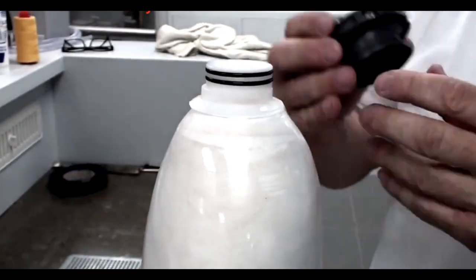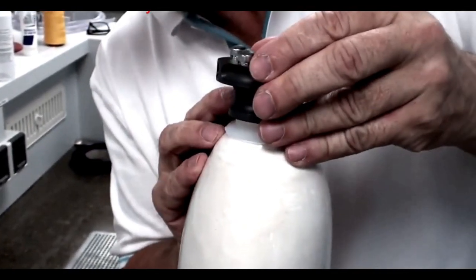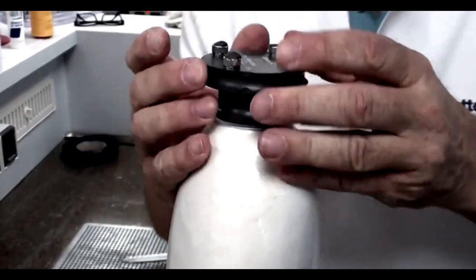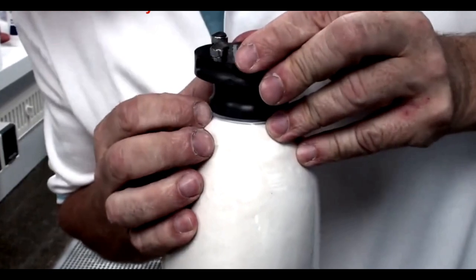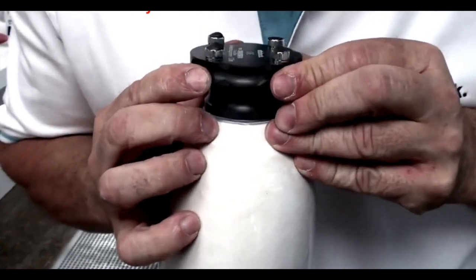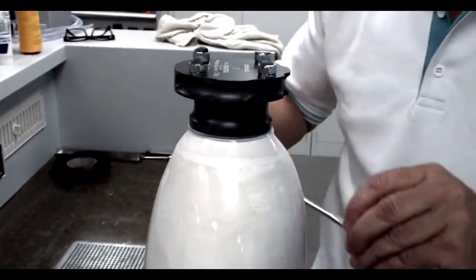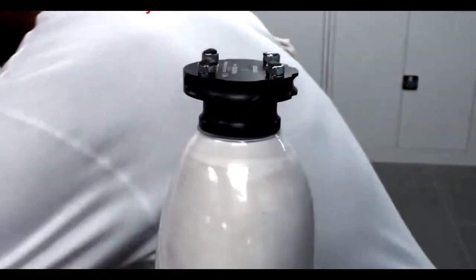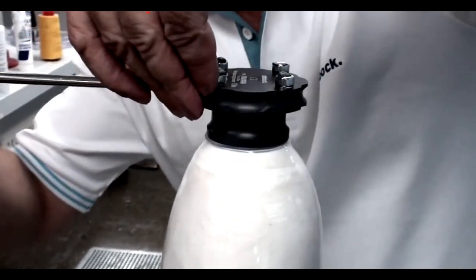Place on the DVS pump same as you did during the thermoplastic check socket portion. Remember, only insert the lamination screw for the expulsion port after the pump is in place. In this way you'll avoid an air pocket being captured in the lamination.